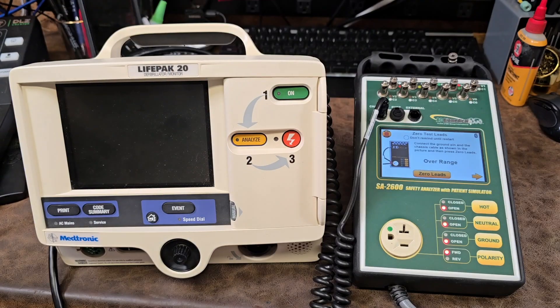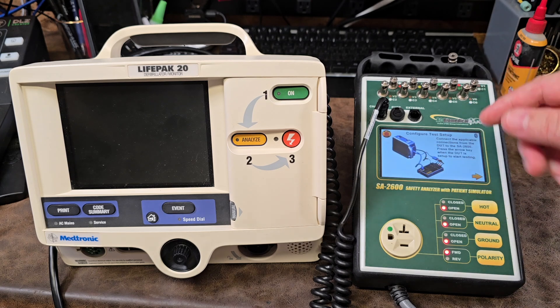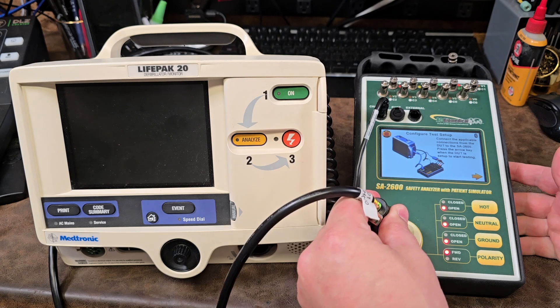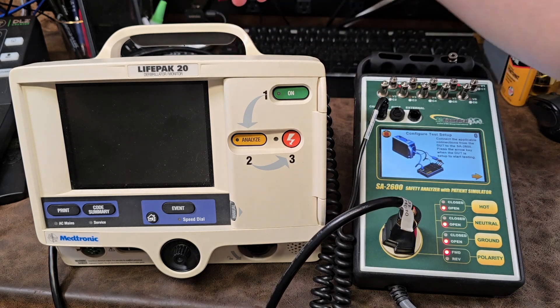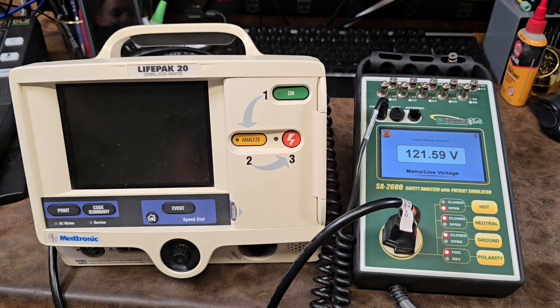After we've zeroed the leads, the next thing you do is press the over arrow, and that's going to tell you to connect the device to the electrical safety meter as shown in the little diagram. That means we're going to plug in our receptacle and make sure that our gator clip is still plugged into the back of the machine. We press the yellow arrow and now it's going to go into measuring the mains.